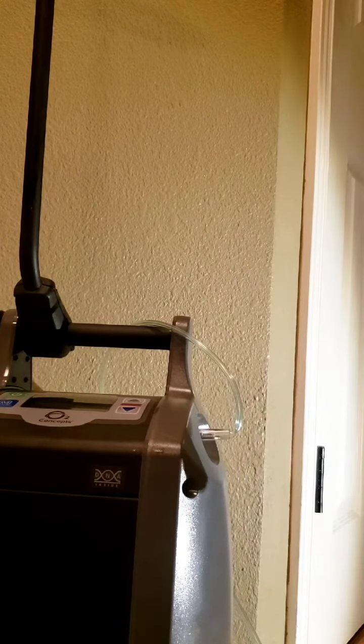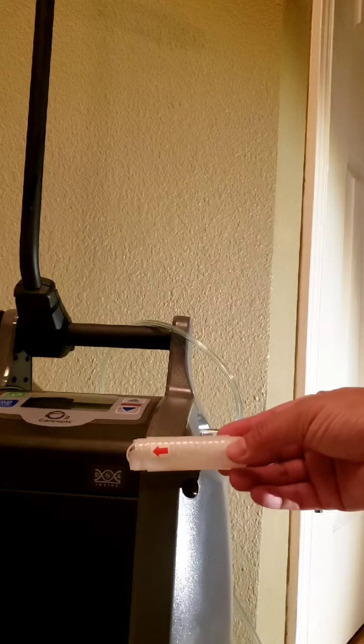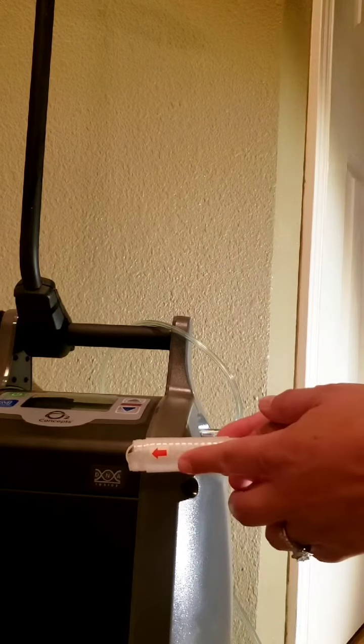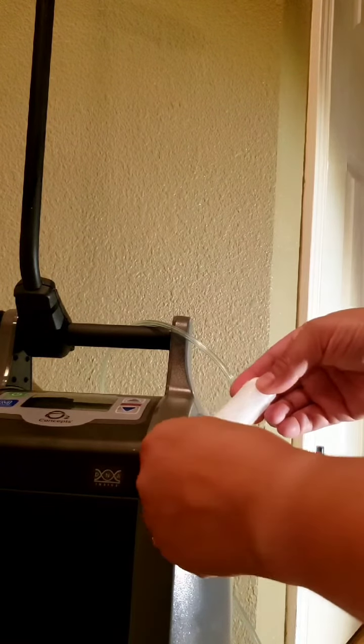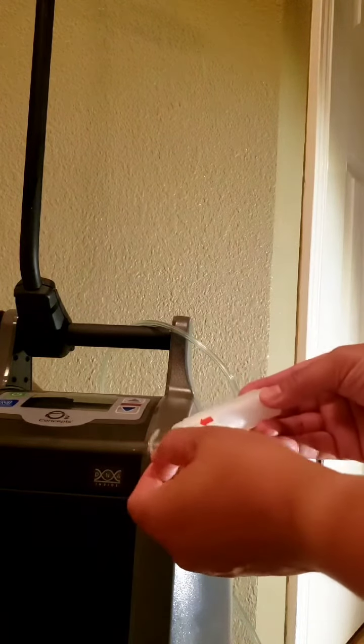So what we're going to do is we're going to take our kink clear. The arrow is going to indicate which end to pull out the little tail.